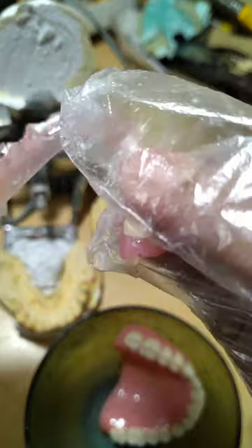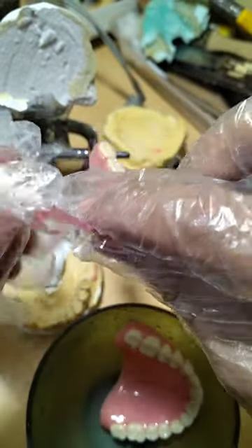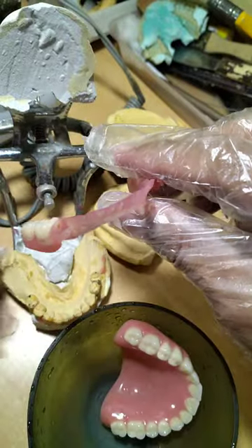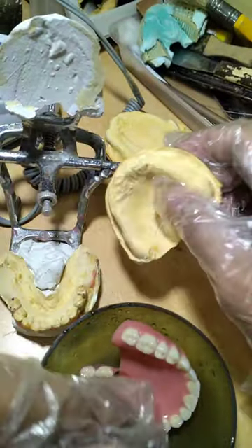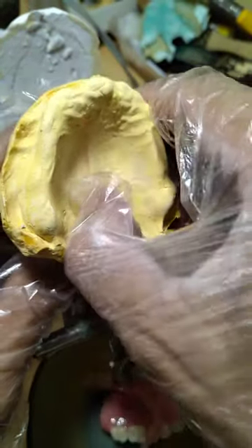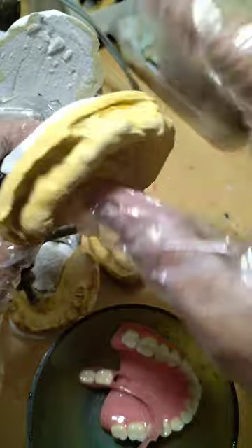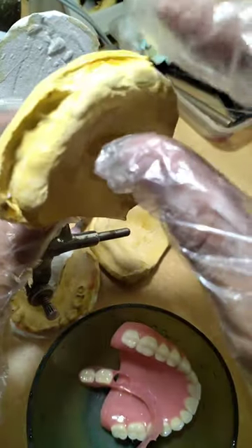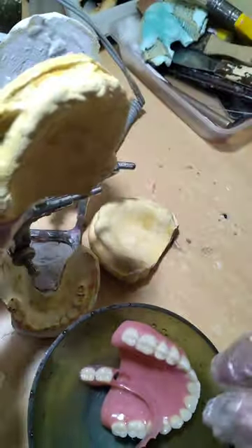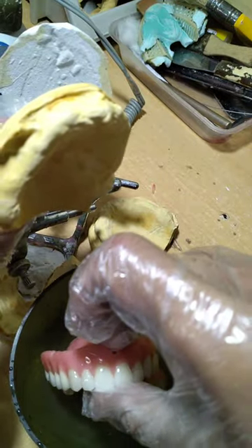At kailangan isuot. Sa case niya, meron lang akong gustong ipalawa. Sa case ni ma'am, ito ay healthy pa yung gamit. Pwede niyang pagawa ito ng ordinary na pustiso lang, tapos plastic yung ipin — pwede. Pero kung may budget siya, mas mainam kung mahal na pustiso, gaya ng Ivocap denture, tulad ng ginawa ni Doc Julius sa case niya.